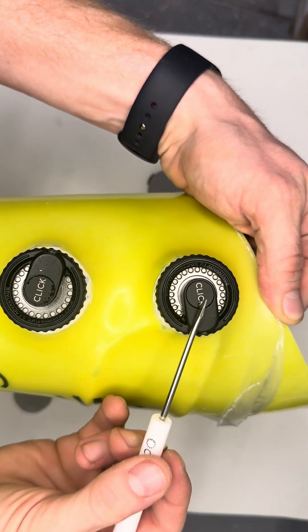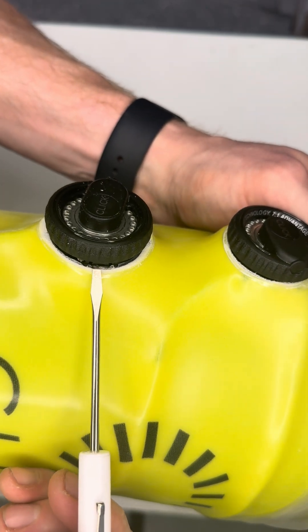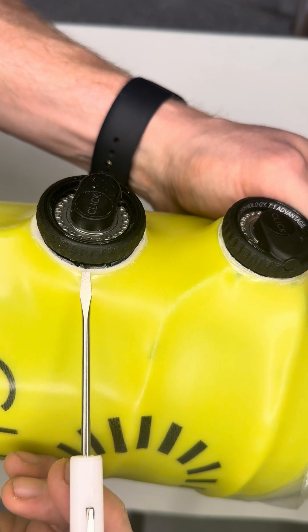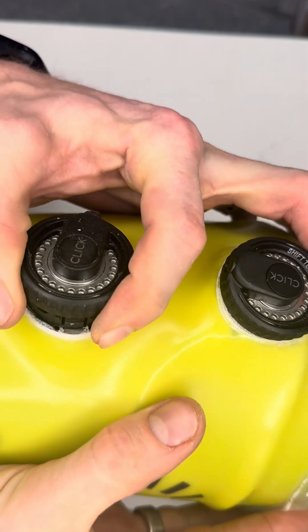From the top view, both of these reels look about the same, but if we need to release the dial, we can see here — because we took down that lamination collar all the way to the base — that little metal bridge is showing up. That's our indicator where our retention tab is. We depress that to remove the dial.